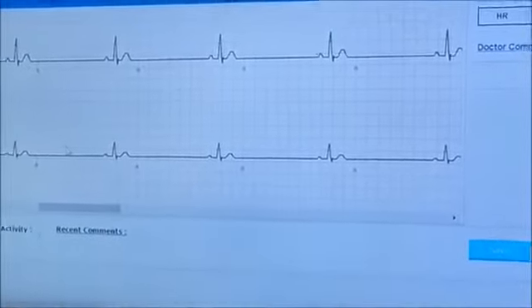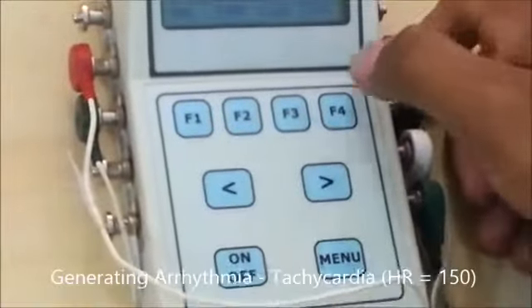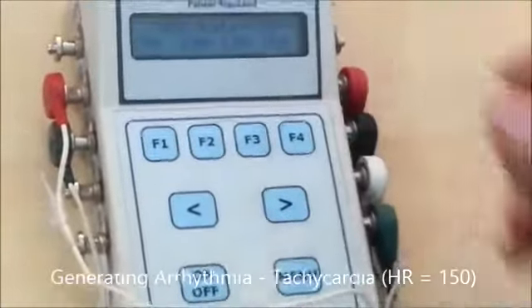We'll go back to the ECG dashboard. I am putting it to 150. So immediately it will change on the mobile. And the same thing you can see in the cloud.